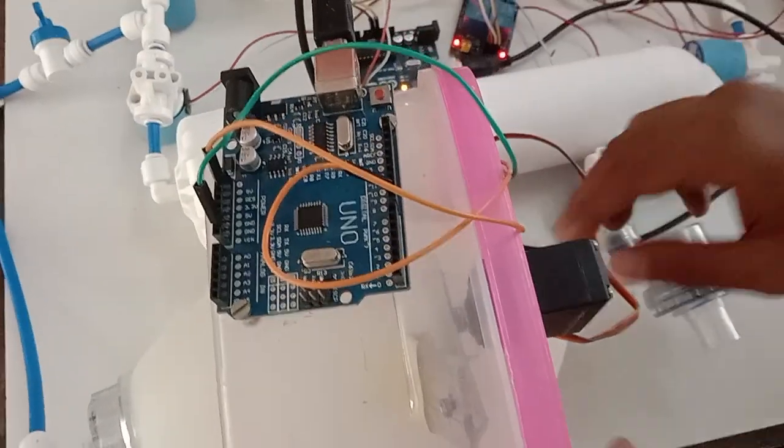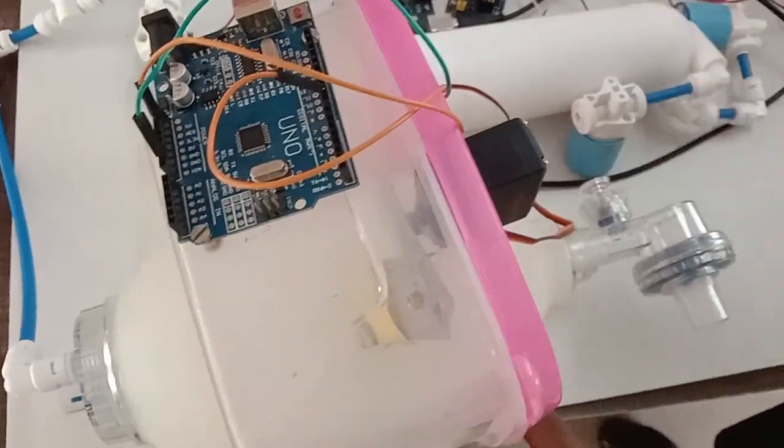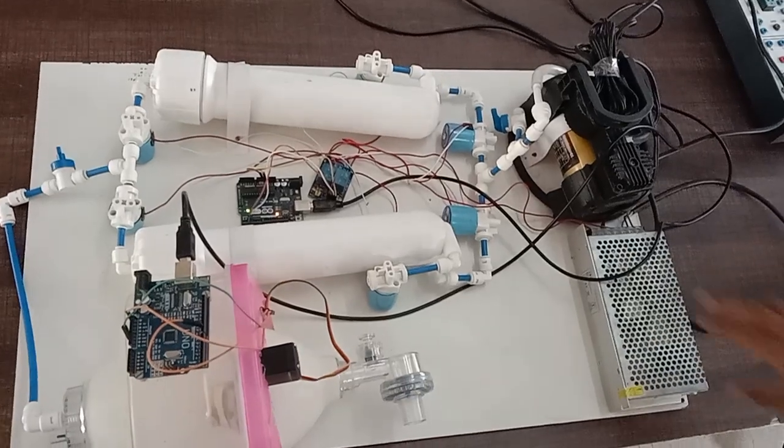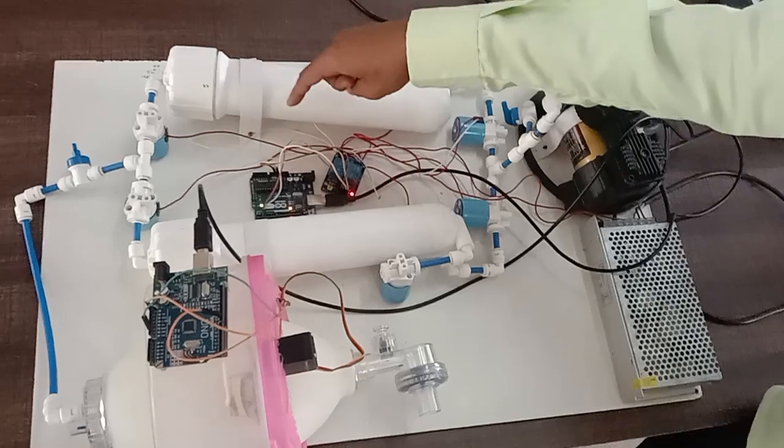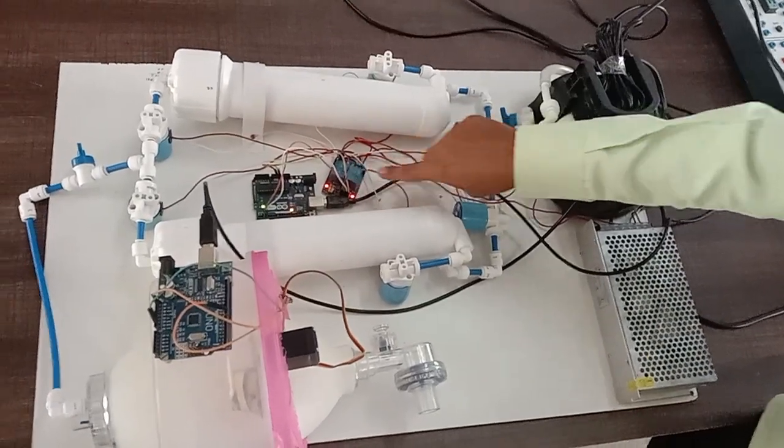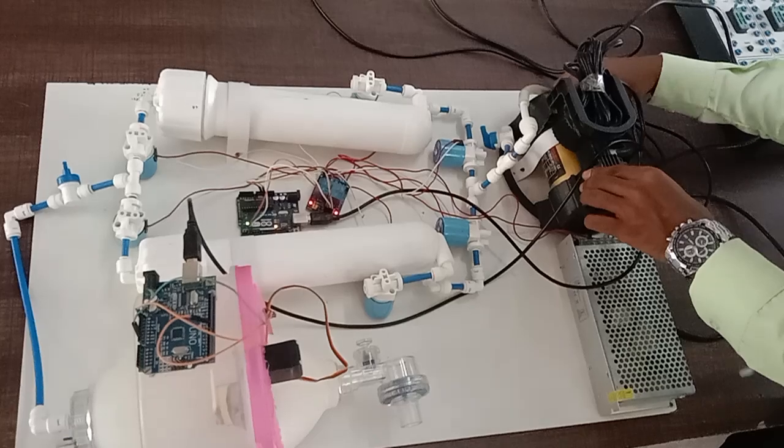And now let me show you the working of the whole project. So, let me start the working process. Over here, this is the relay which is going on switching. Now, if I switch on the compressor.